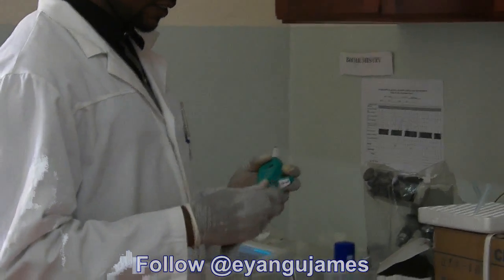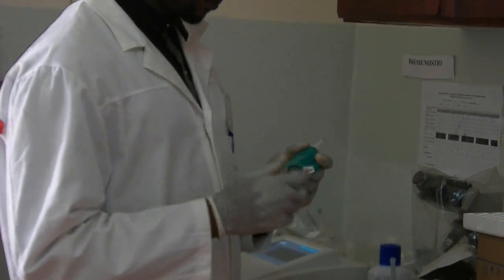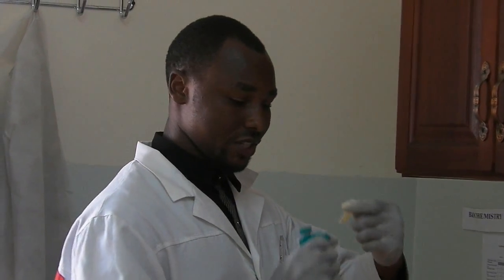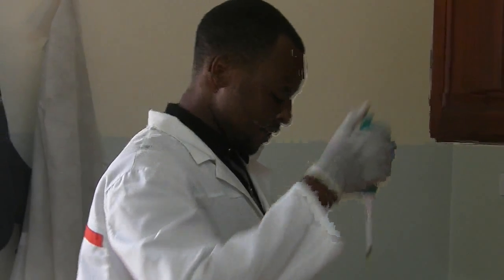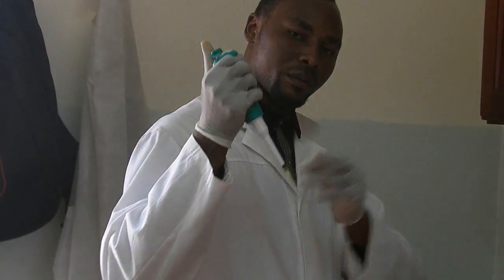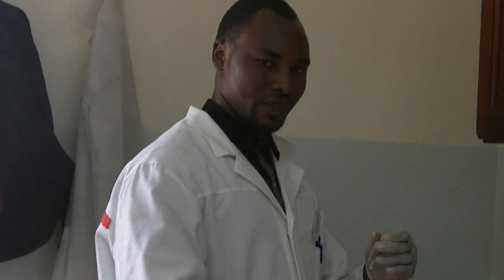Make sure you adjust your other pipette. We are going to transfer 10 microliters of the patient sample — the patient serum. I aliquoted the patient serum here from the original sample. From the time you introduce the patient serum into the triglyceride reagent, make sure you begin timing.